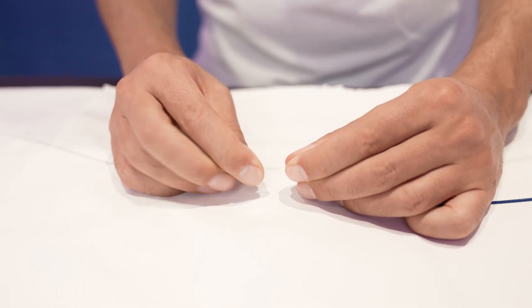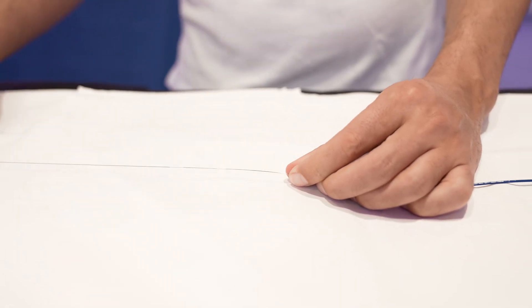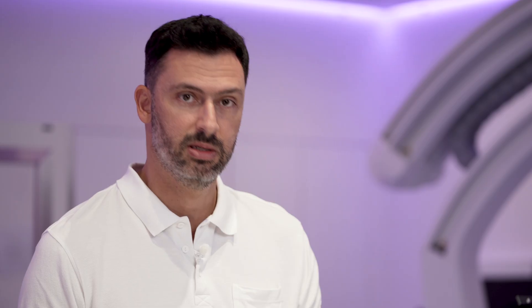If for whatever reason you want to connect it again, this can be done easily. Now you have a smooth 3-meter 15-centimeter wire that you can use for exchange maneuvers and other purposes.